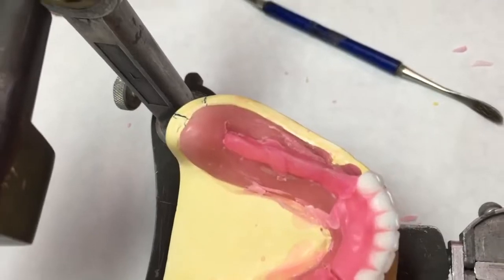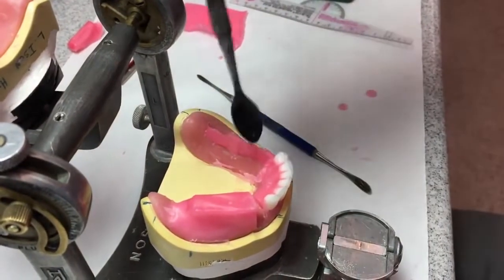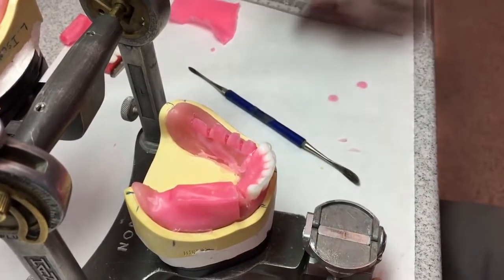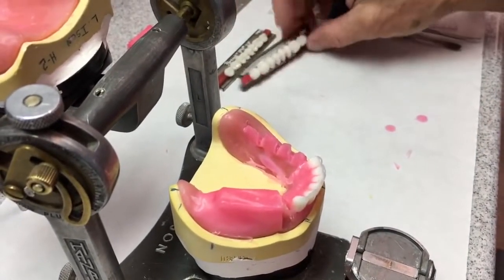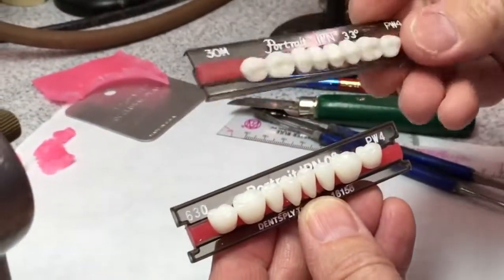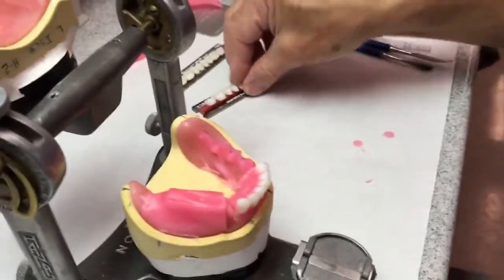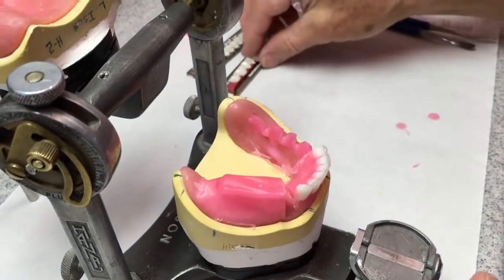Then I'm going to loop that down so it doesn't move. I'm going to break it up into a little wax for each tooth — one for the first premolar, one for the second, one each for the molars. Now I've got my teeth arranged on my bench the way they go. With the writing up, the occlusal surface is up for the mandibulars and occlusal surface is down for the maxillaries, so they're going to occlude just about like that. The patient's left side goes right on here, and the right side goes right over there — arranged on the cards for you.